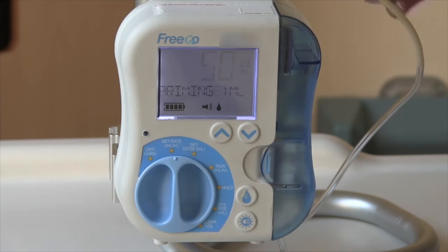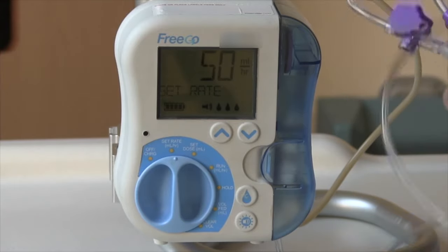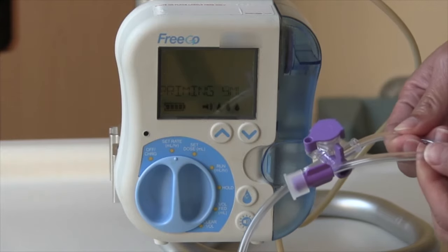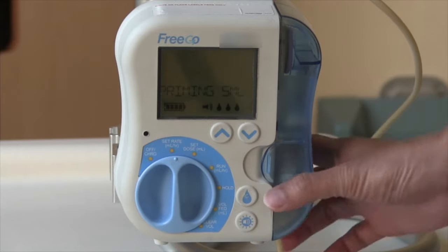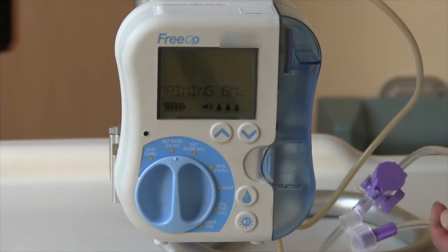The feed will automatically fill the tube until the end. It might stop 1-2 cm from the end, which is acceptable. If you notice the feed is coming right to the end of the tube and it's not stopping, press the raindrop button to stop the feed. You have now primed the tube and are ready to program your pump.